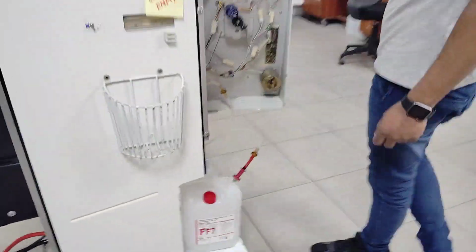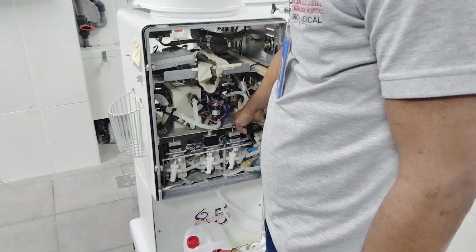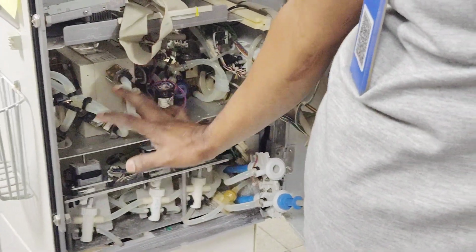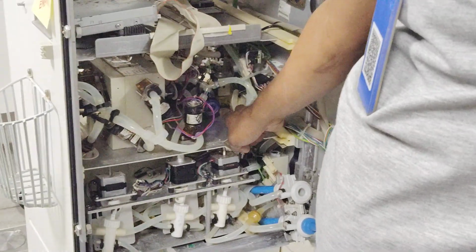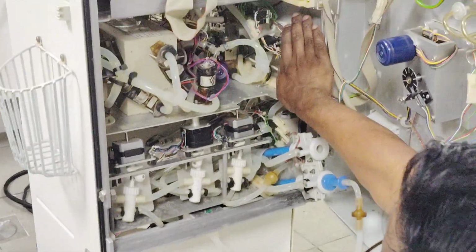So you will see the front side now. Same thing you see there. This track, ultrafiltration track, balance chamber. The connections are there. Solenoid valves are there. This is the pump. FPA. Okay, pump outlet. And in the rinse bridge, we call this part.